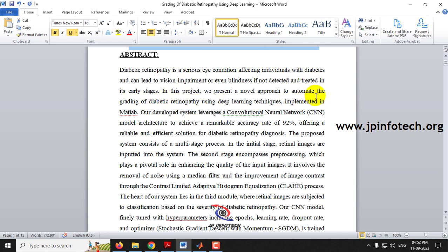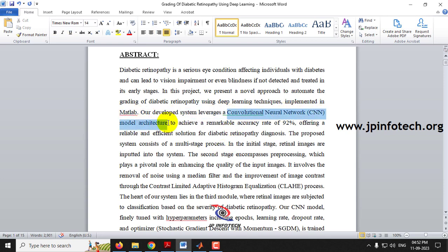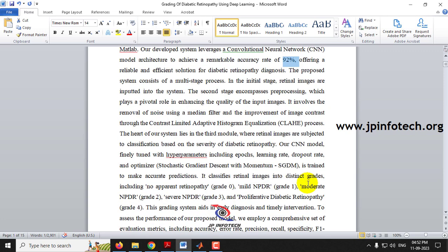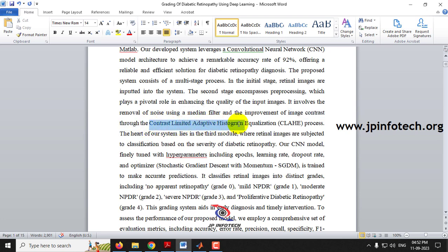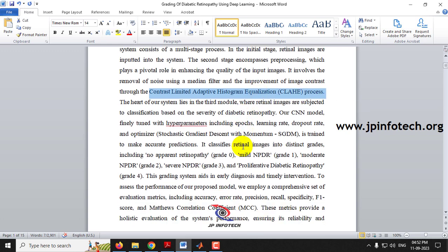The proposed system is named 'Grading of Diabetic Retinopathy Using Deep Learning,' implemented in MATLAB using a CNN model architecture. We have achieved an accuracy of 92% for diabetic retinopathy diagnosis. The pipeline involves reading images, then pre-processing — which includes noise removal using a median filter and image contrast improvement through CLAHE (Contrast Limited Adaptive Histogram Equalization).